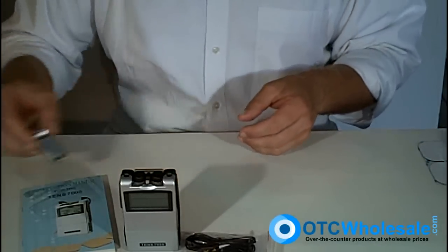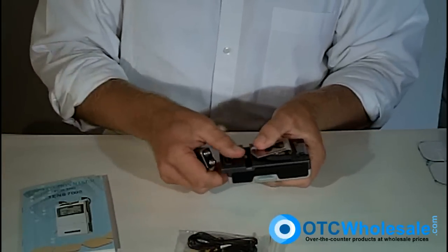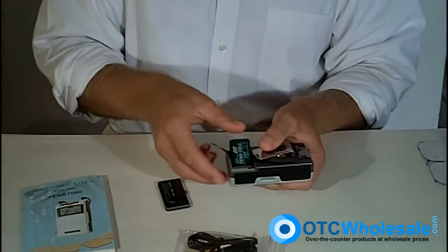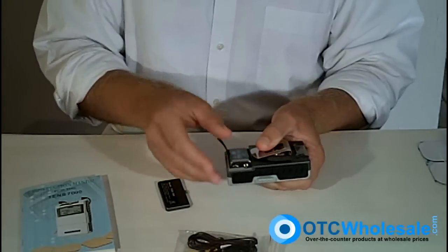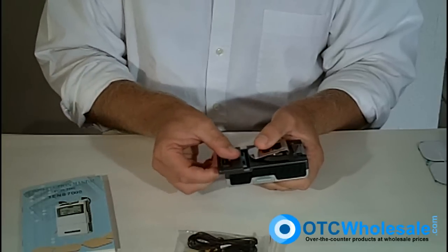We can take this nine-volt battery and just pull the battery cover off in the back. You can see the ribbon for easy battery extraction. I'll just stick that battery in like that — it snaps in. Nice heavy-duty plastic construction.